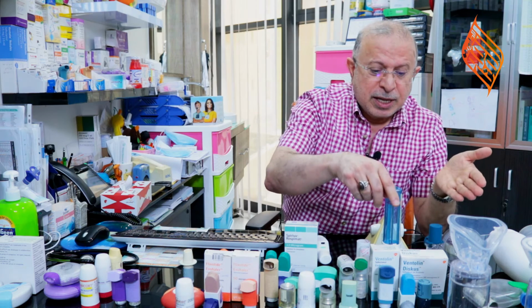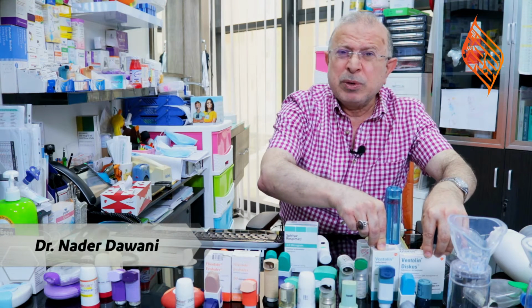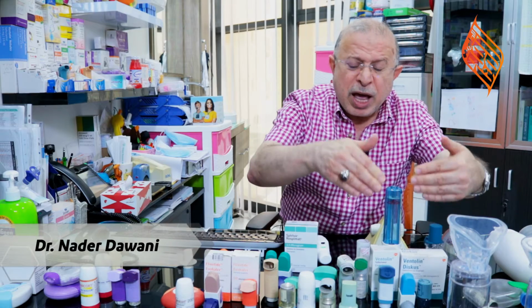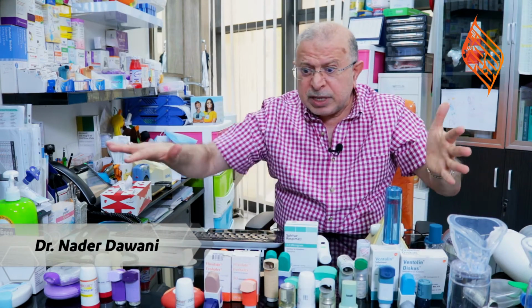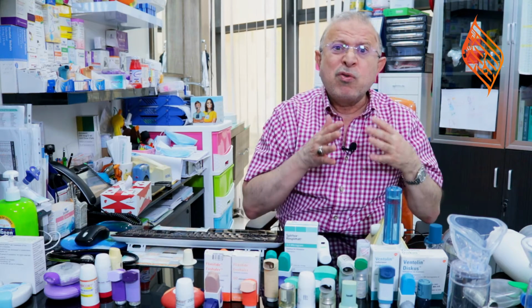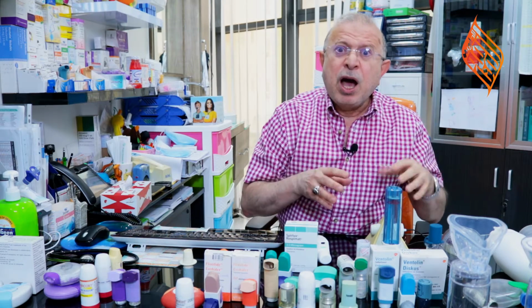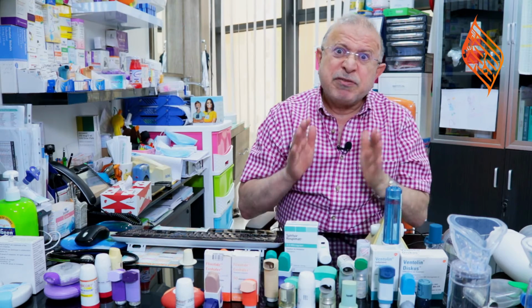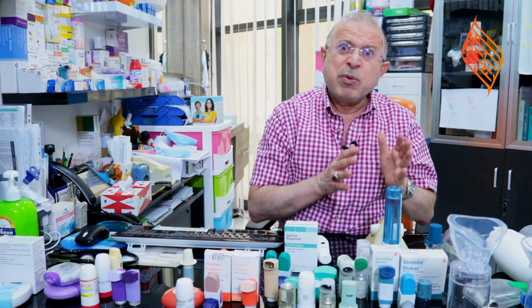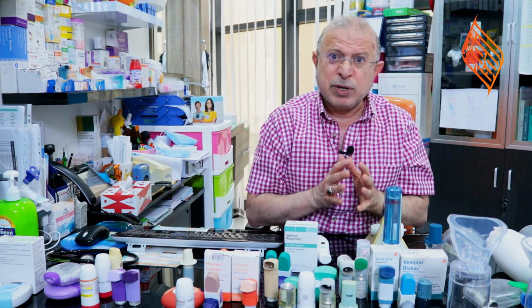Dear colleagues, these short-acting beta-2 agonists, like salbutamol, we have different types. Our aim in all this presentation is that we need to get these medicines to the lungs of the kids appropriately, to the maximum. How to reach it? This is different now. Every child is different. We have to see the child and practice on the child as well.